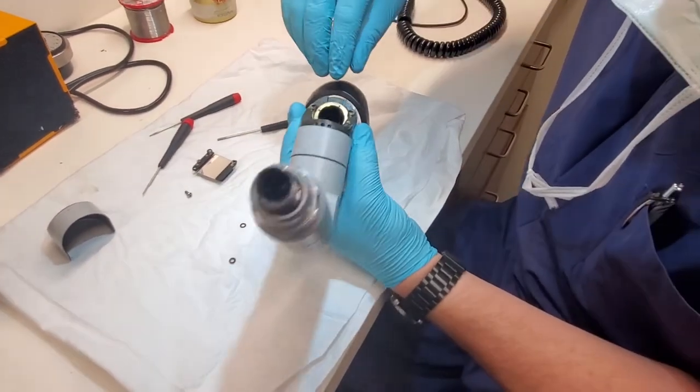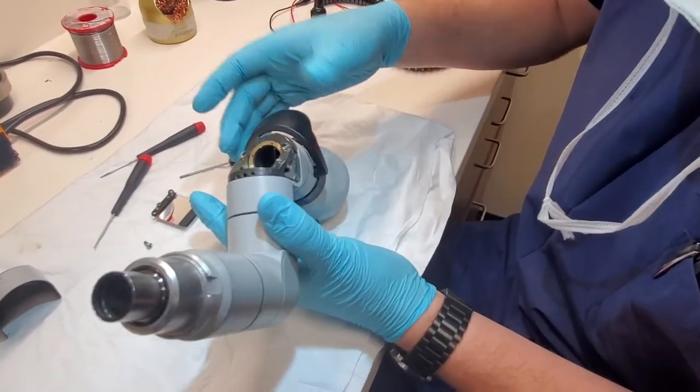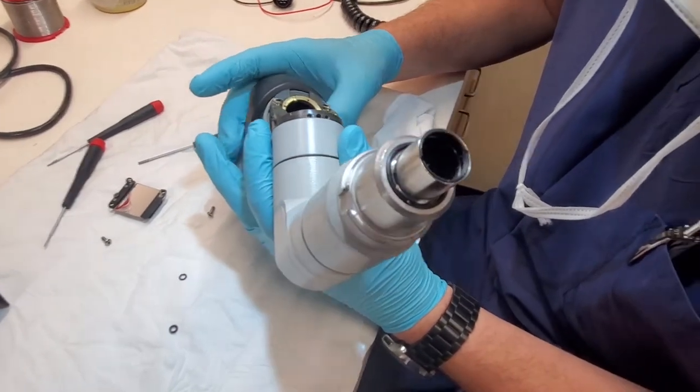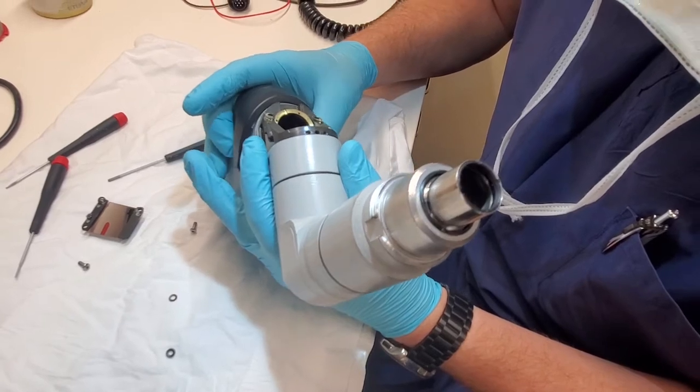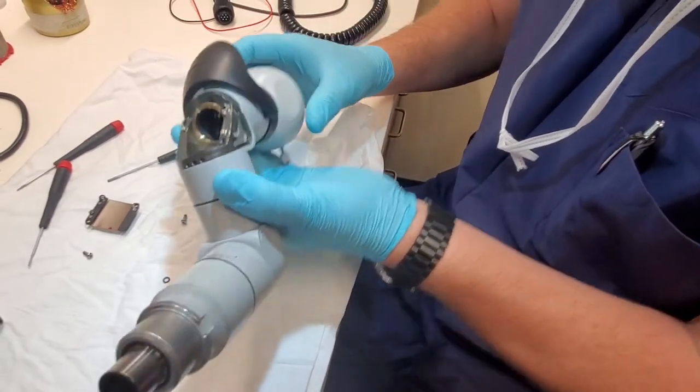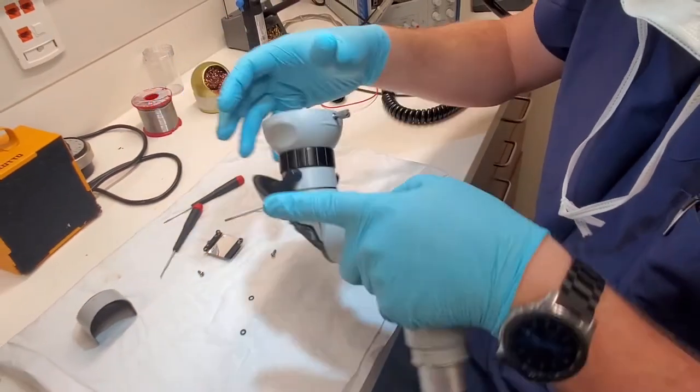So here we have two lock rings and you can see the prism right there, the one that rotates. See how it goes around and around? That little wedge prism is what creates the rotating image here at your exit. And this is where your binocular attaches.